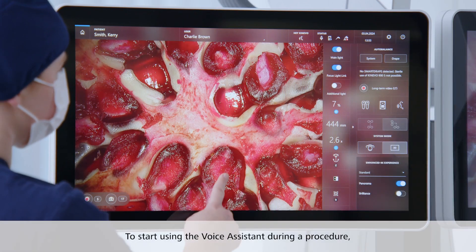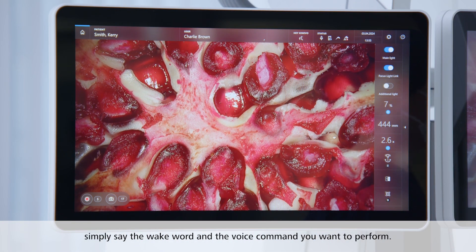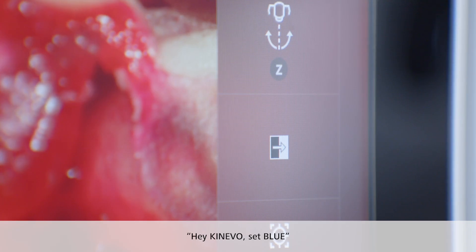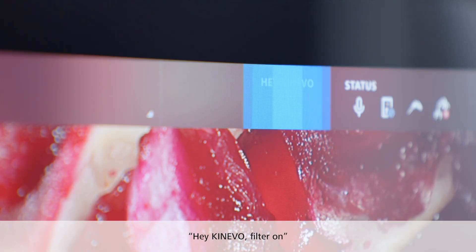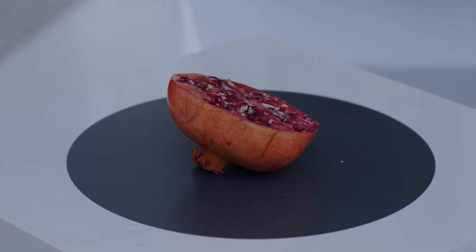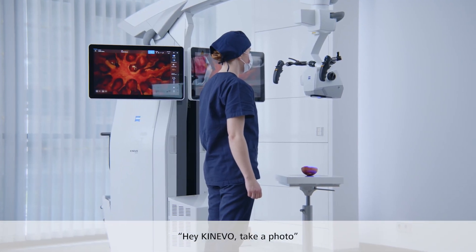To start using the voice assistant during a procedure, simply say the wake word and the voice command you want to perform. For example: 'Hey Kinevo, Set blue.' 'Hey Kinevo, Filter on.' 'Hey Kinevo, Take a photo.'